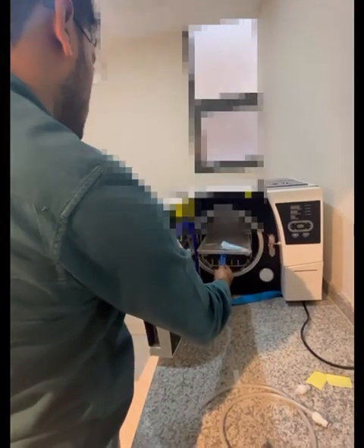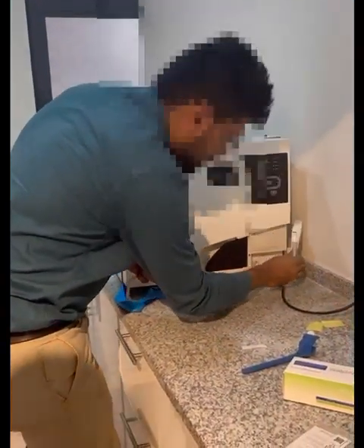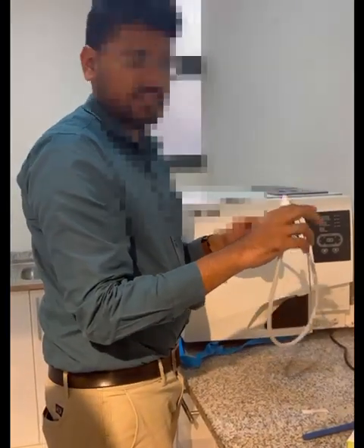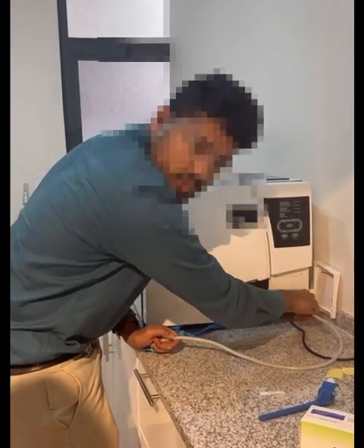I can easily put the tray and take it as well. I need a bowl because now, to drain the water, you have to connect it like this. Once you turn it, once you just connect it, the water will go out. Then you don't need to push any metal or something, you just have to enter it here, and once it gets locked in this, water will come out.